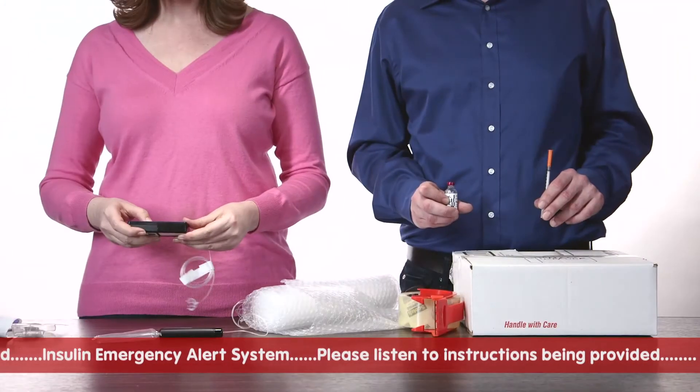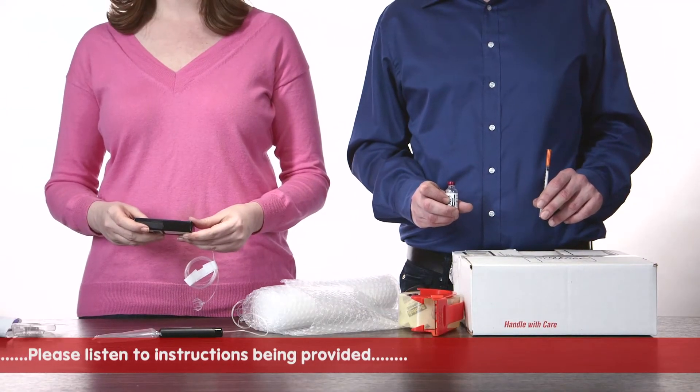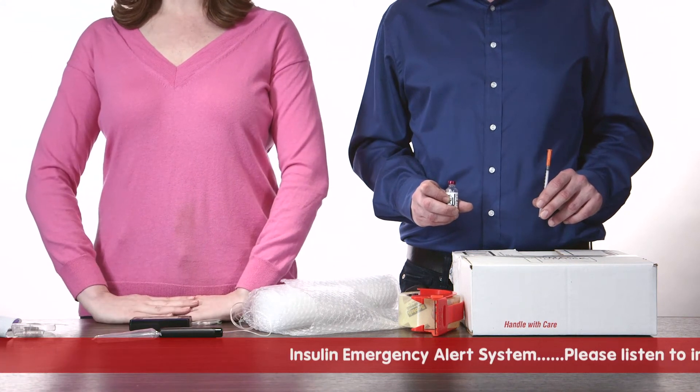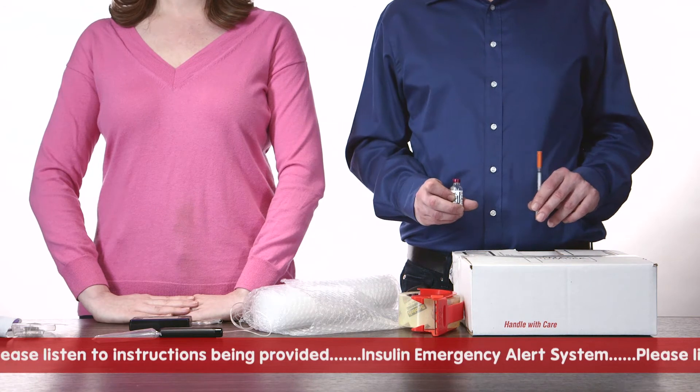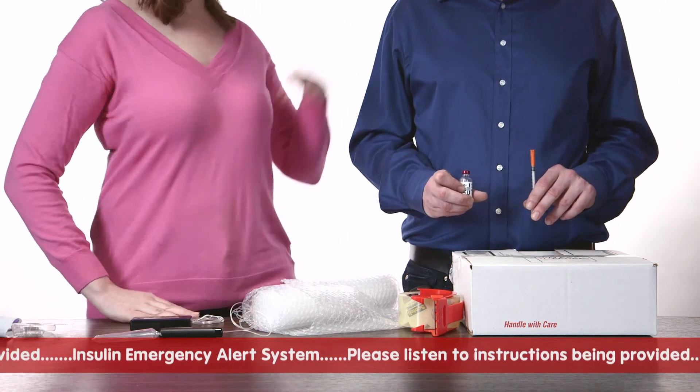When your pump setup is complete and you are once again receiving a steady supply of insulin based on your individual need, please direct your attention to any pump users in your area who do not have snap and assist them in their time of need.